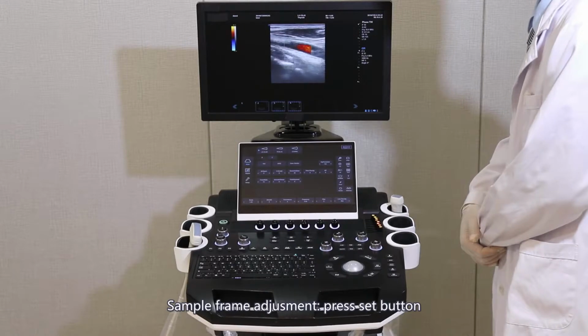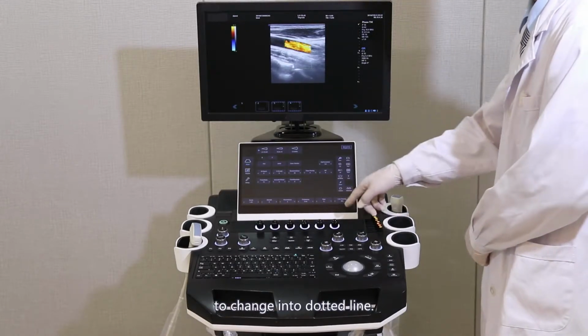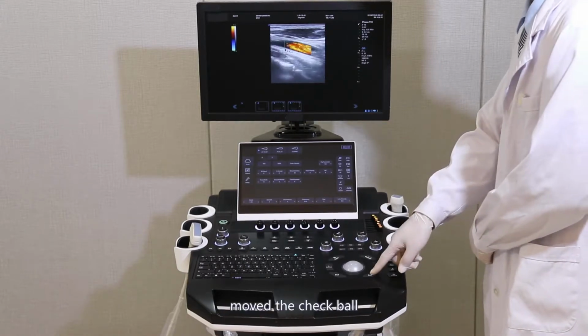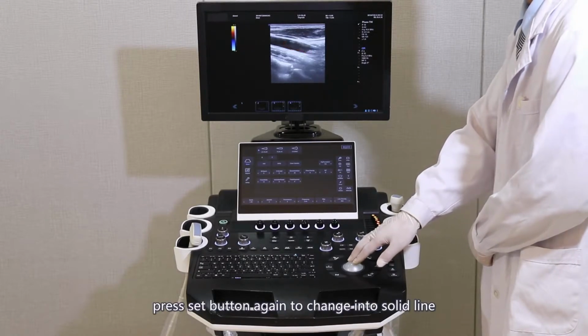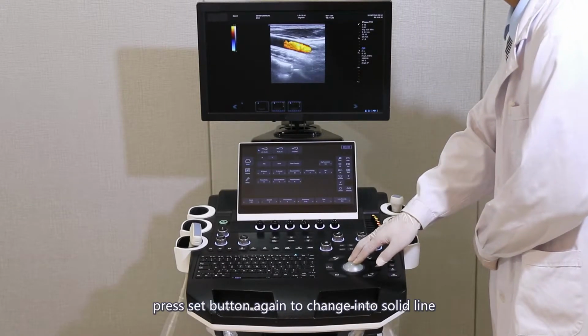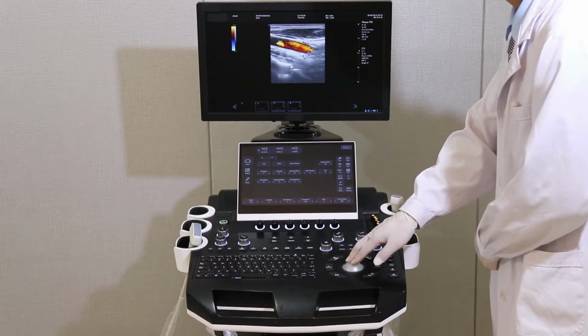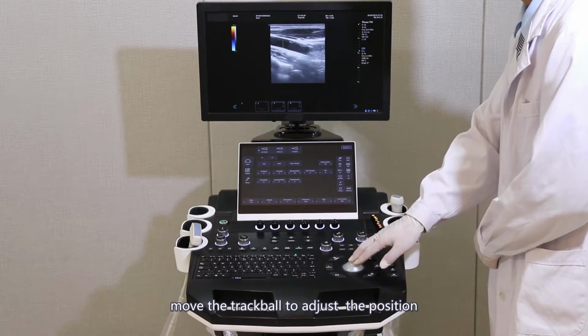Sample frame adjustment. Press the Set button to change into a dotted line. At this moment, move the trackball to change the size. Press the Set button again to change into a solid line. Move the trackball to adjust the position.